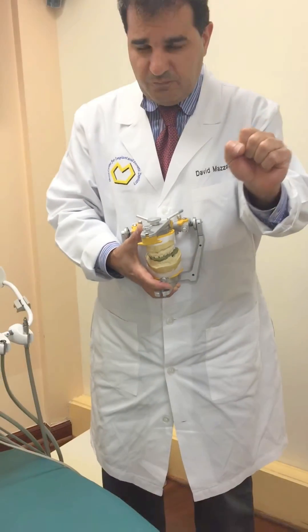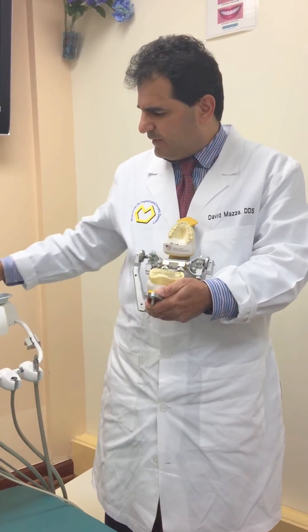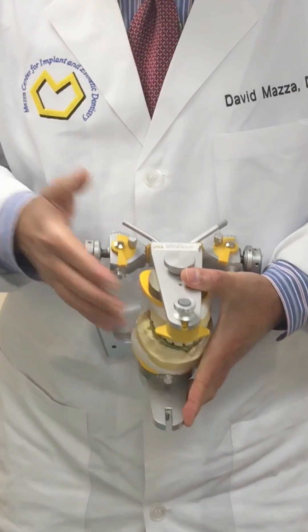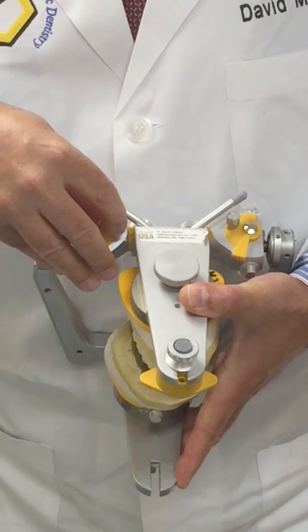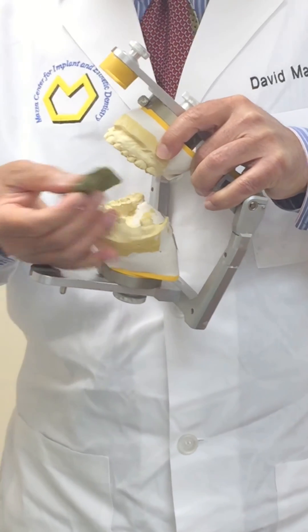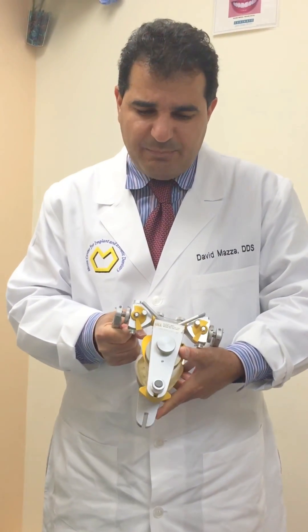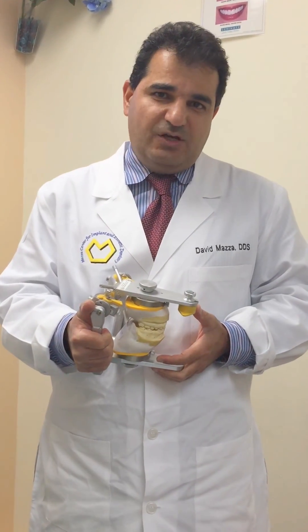I'm going to move the left scale very gently until it touches and stops, then fasten the Bennett thumb screw on that side. Remember that when the patient moves to the right lateral excursive, the condyle on the left side moves forward, downward, and towards the patient's right — this is called the non-working side. I do the same with the left lateral excursive bite registration, adjusting the patient's right Bennett angle by moving it until it touches the plate and stops, then locking that Bennett thumb screw. Finally, I lock both condylar centric locking rings by pushing them inward until they click. The articulator is now properly set with the Bennett Angle and horizontal condylar inclination established based on the bite registrations. Thank you.